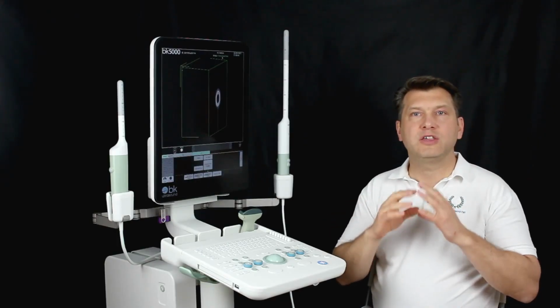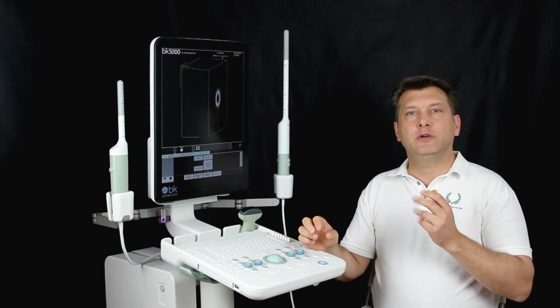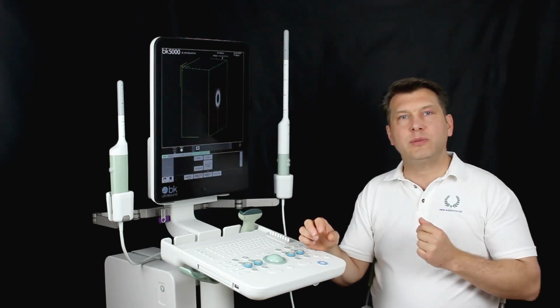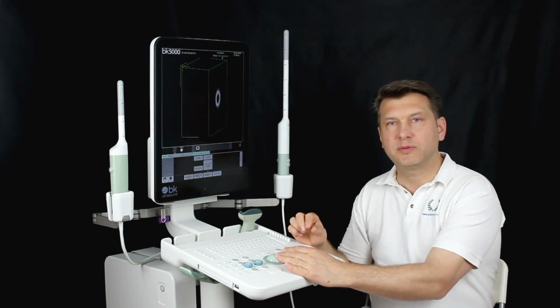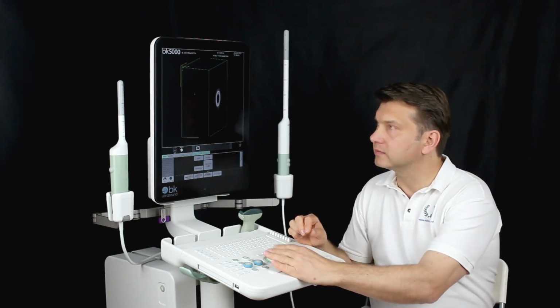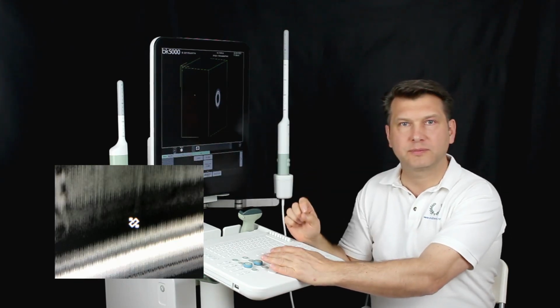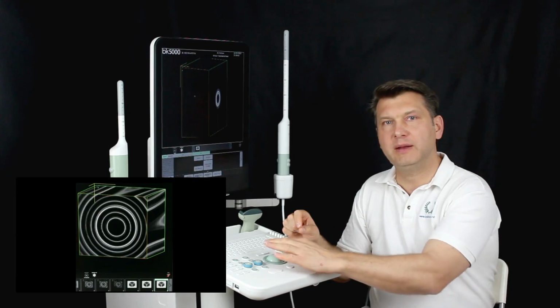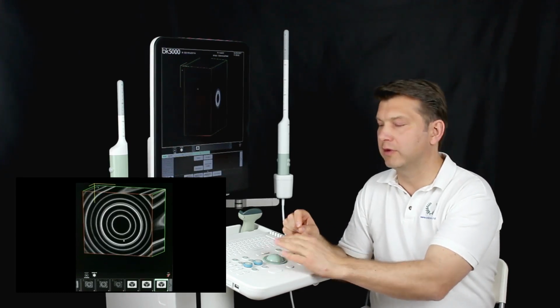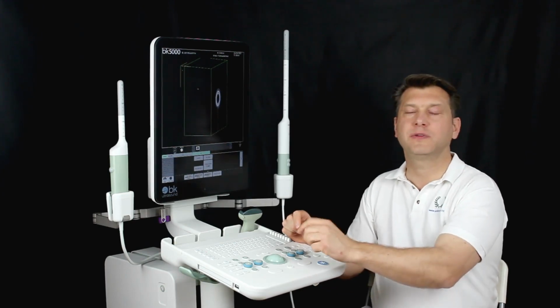We can now enjoy the benefits of 3D recording. In order to enter or extend into every particular plane, we move the cursor to the center of the corresponding plane, so the following symbol appears. Now we click on it and push the plane forward or backward. By clicking again, we detach ourselves from this function.